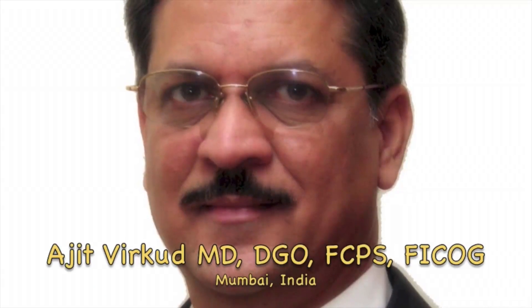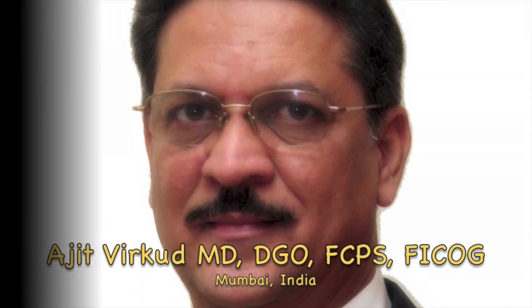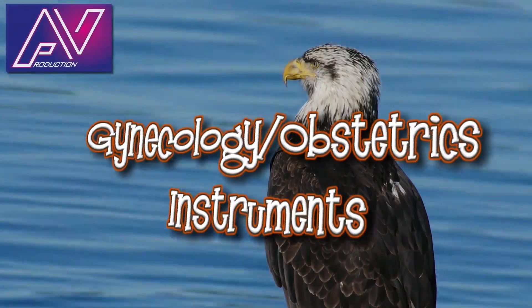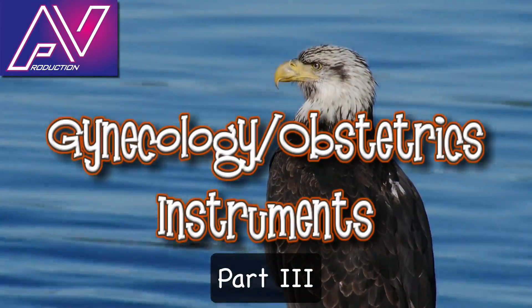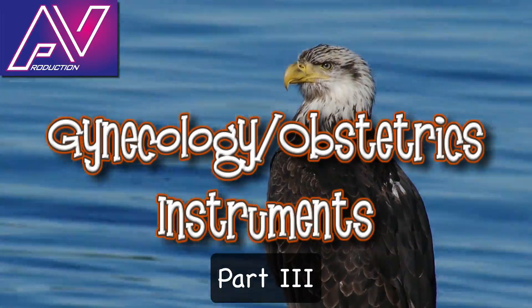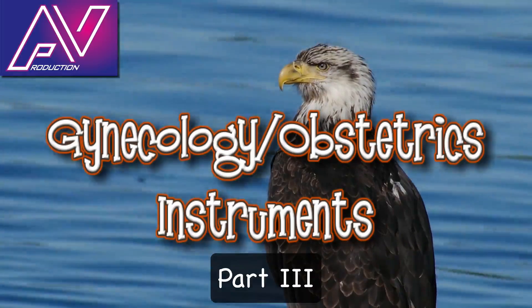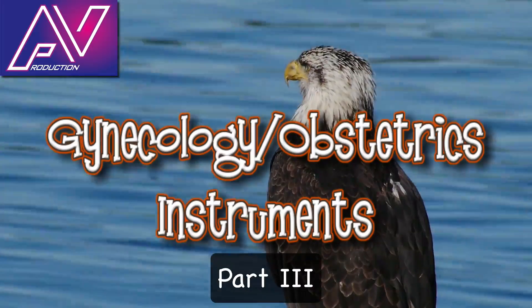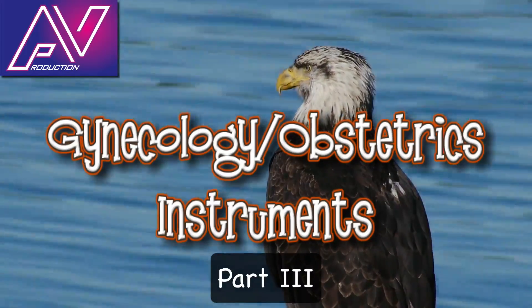Hi, I am Ajit Virkud, Professor of Obstetrics and Gynecology from Mumbai. In this HD video, I am going to discuss instruments used in obstetrics. First, I will show instruments that are currently used in obstetrics, and then obsolete obstetric instruments that are relics of the past and no more used in modern obstetrics.